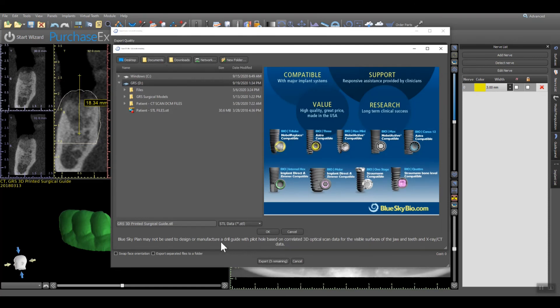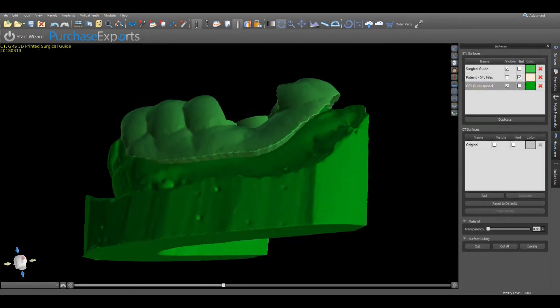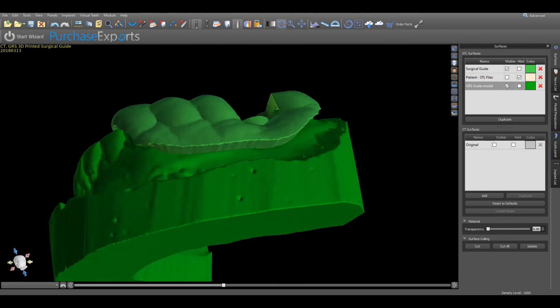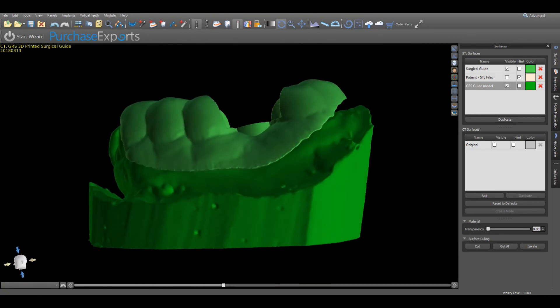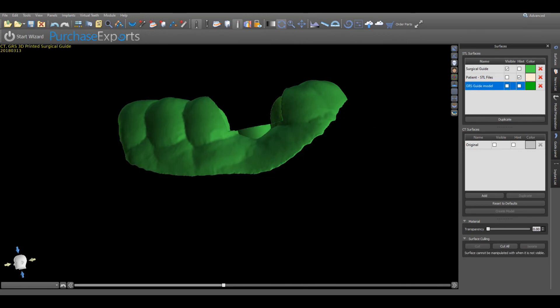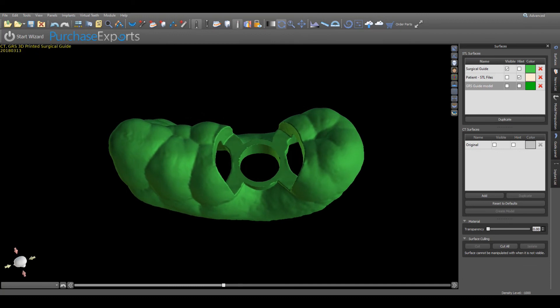At this point, export each individual STL file separately, select the name and location for the exported data, and click OK. The individually saved items are now ready to be 3D printed. It is important to follow all guidelines recommended by the manufacturers of the 3D printer and resins to ensure a highly accurate print.